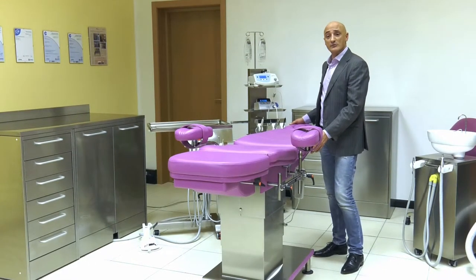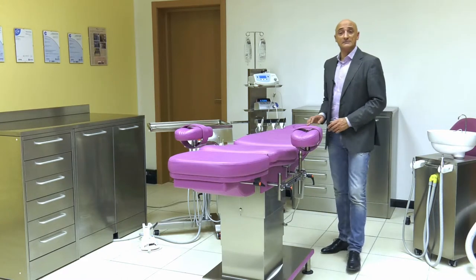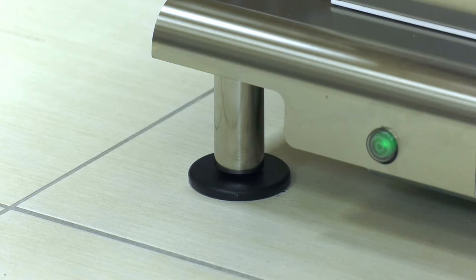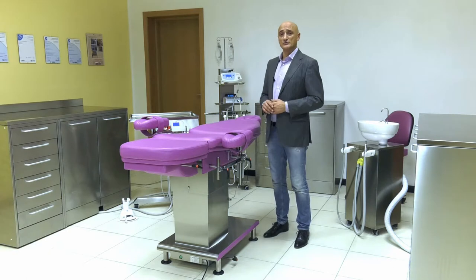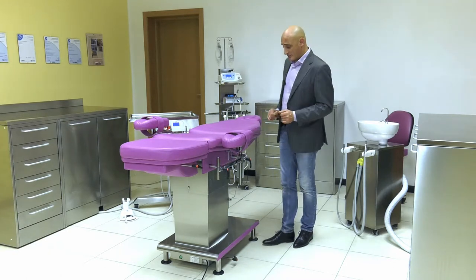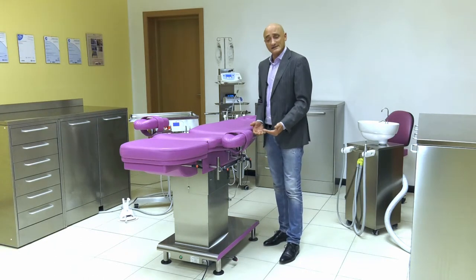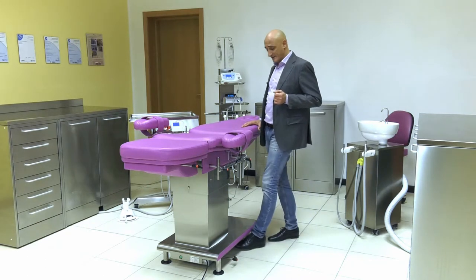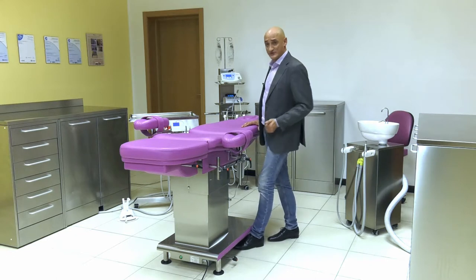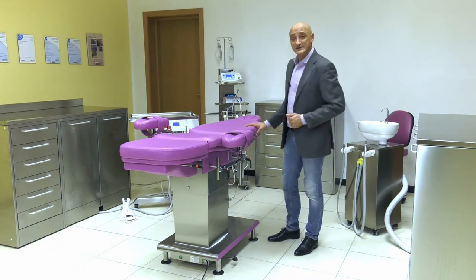The stability of the Morpheus chair is guaranteed by a reinforced base and compensation pistons, which considerably reduce oscillation while working. The chair has 4 feet which lift the base off the floor, firstly to allow the stool and the dentist's feet to fit easily under the chair, and secondly to be able to sanitize the floor properly.